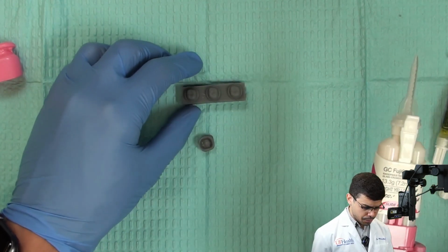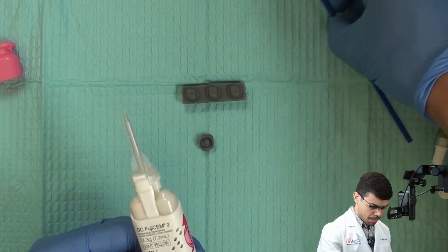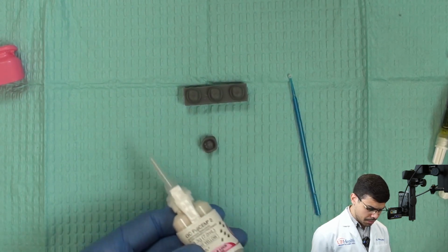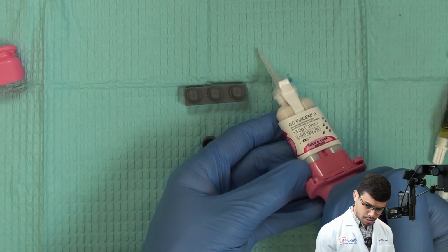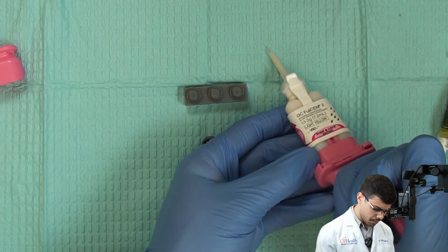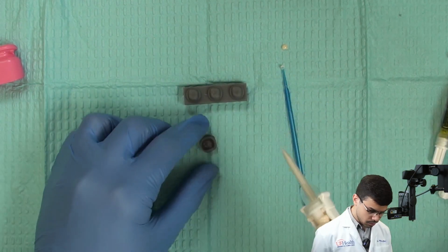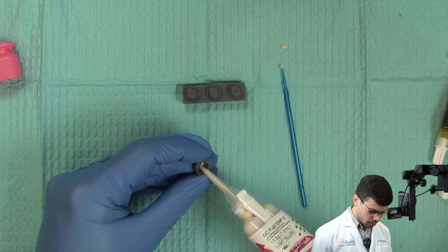So here's pretty simple. What I'm gonna do is, I'm gonna have a bender brush here or a micro brush close to me, and now that I have everything ready, I'm gonna start to dispense the cement, so I can put a little bit of the cement somewhere around here, just to make sure that I have enough cement. And see what happened to me, the tip tried to go out. And now I'm going to put the cement on the crown.